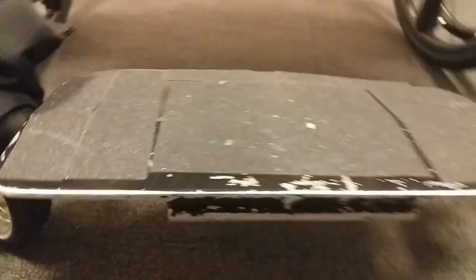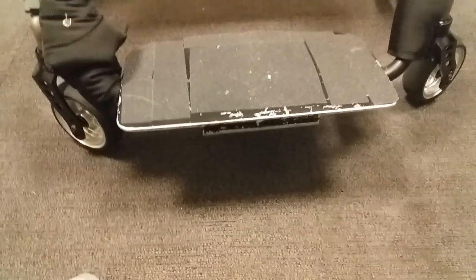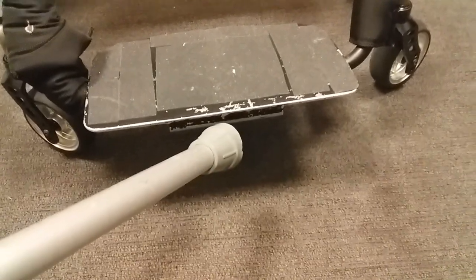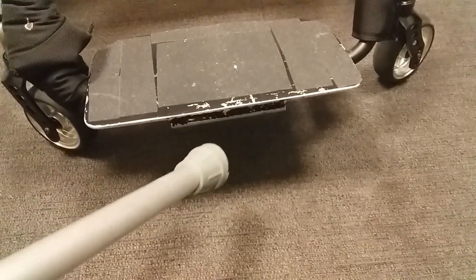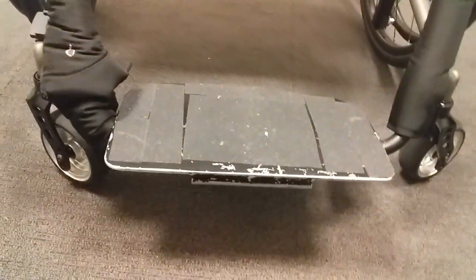Because this foot plate has been damaged a hell of a lot — as you can see under here — I've been hitting walls and gutters and other things. It's the one foot plate that's been damaged, probably worse than anything else. I used to open doors with it, hit concrete, a whole heap of things. It's crazy how badly foot plates get damaged.